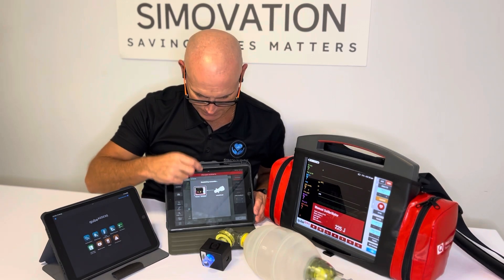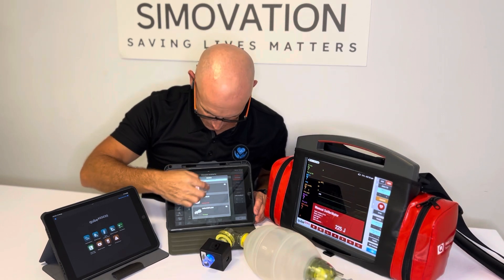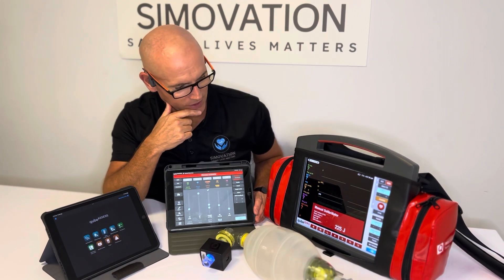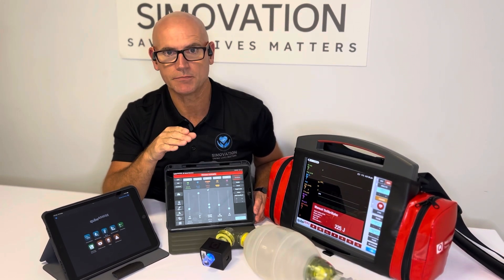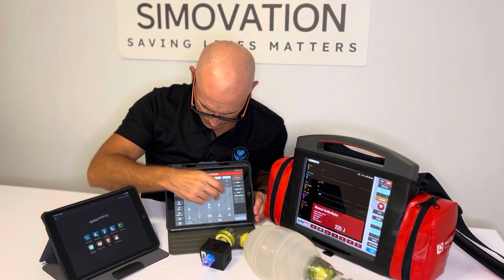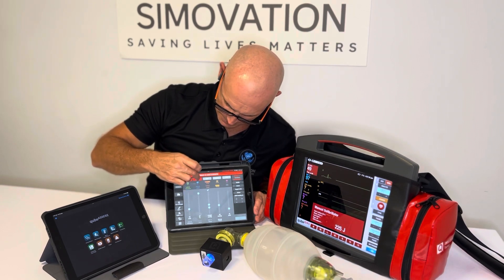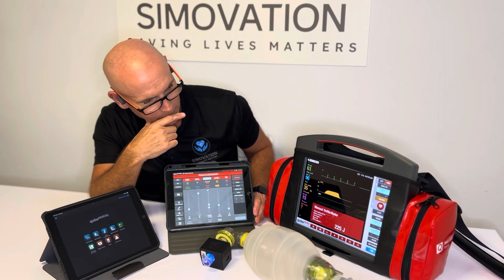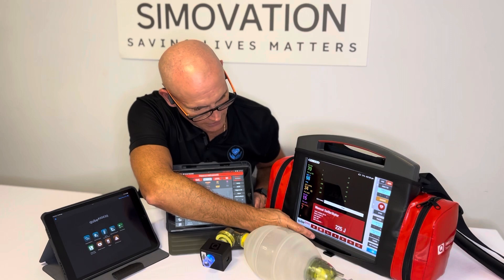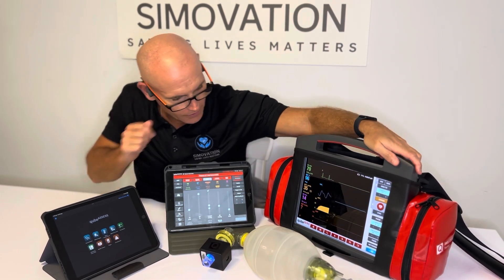I'll connect up the Cube Airflow, and this is just demonstrating the ease with which we can connect everything as a system — it really is seamless and beautiful to use. We've got everything running. I'll start a scenario on the fly, put on some monitoring, put on 12-lead, and we're good to go. Now I'll go back to showing the 12-lead ECG — to do that I need to turn off the manual mode on the device.